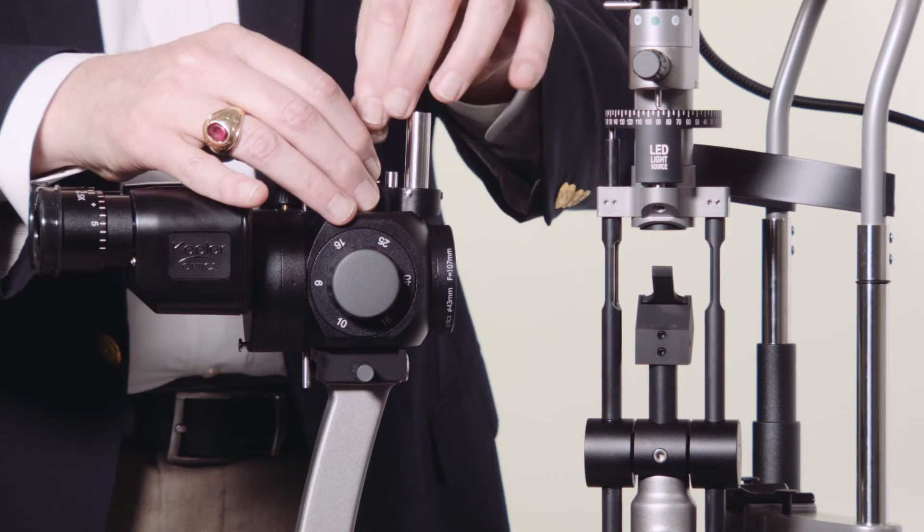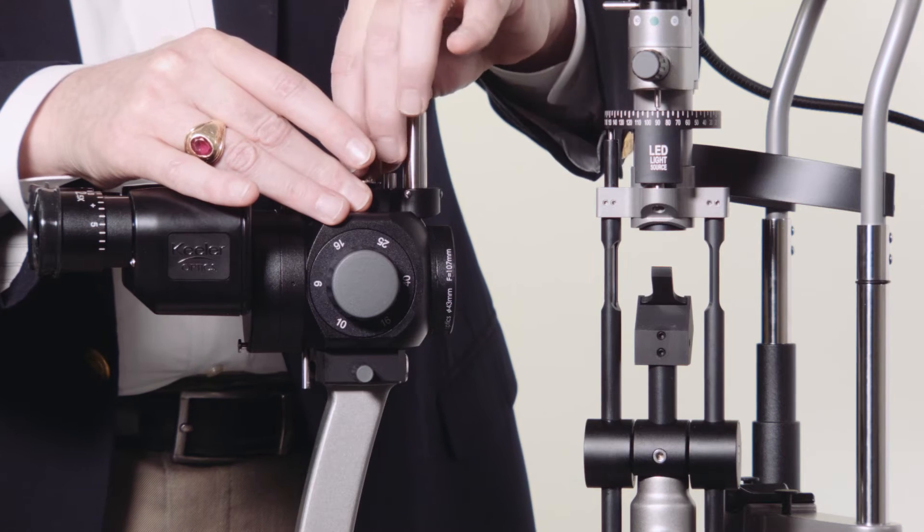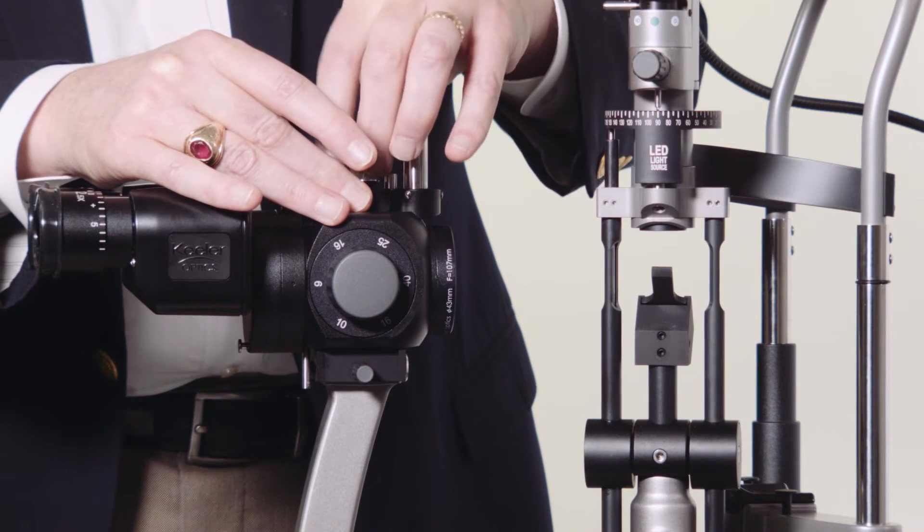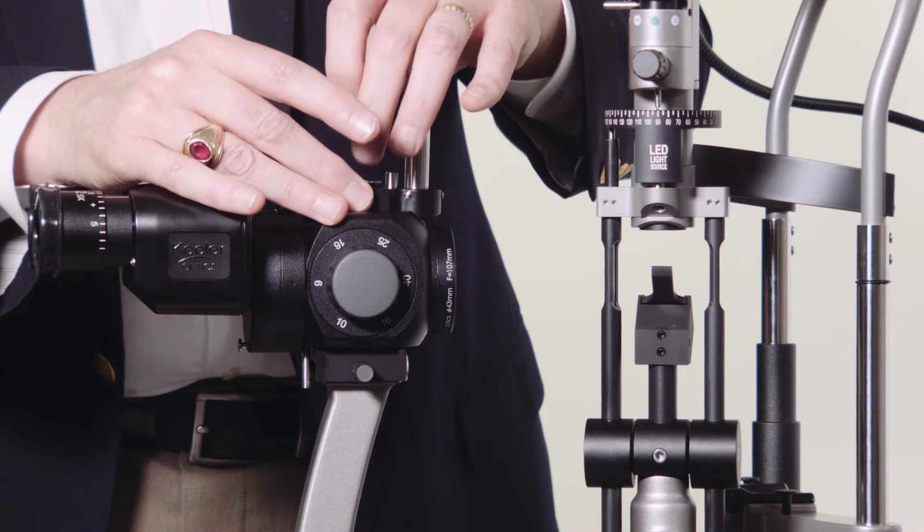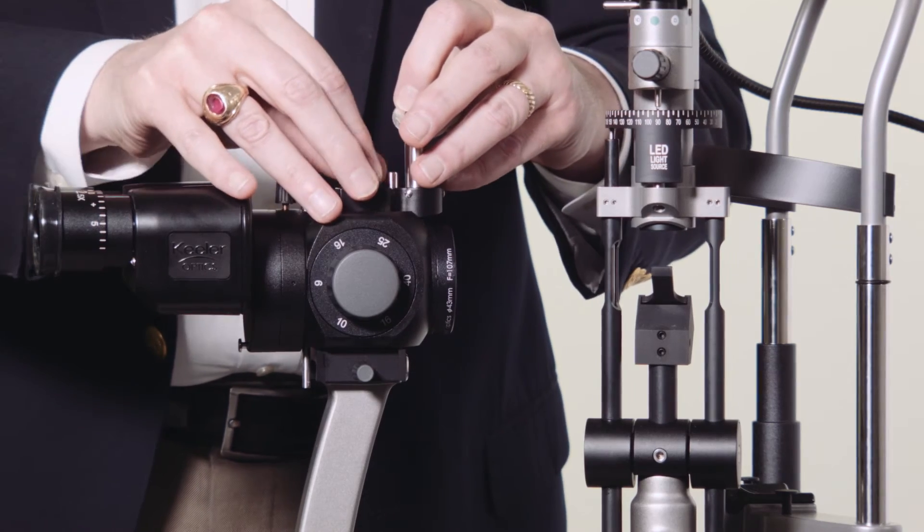To install the T-type K-AT tonometers, insert the pin on its base into one of the two possible openings on the horizontal guide plate above the slit lamp axis.